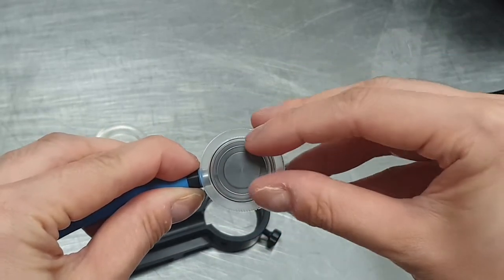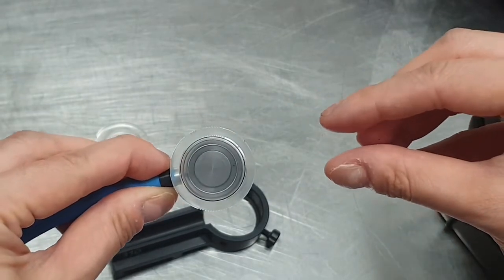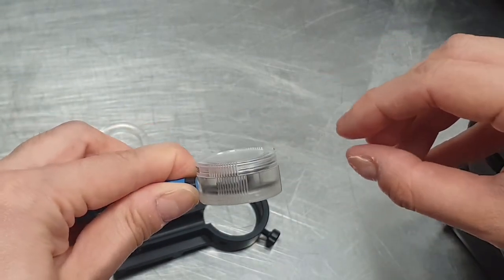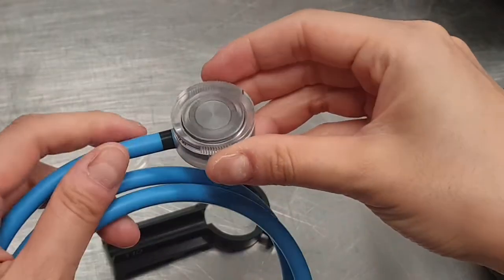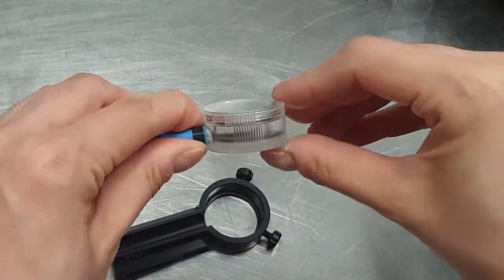The sensitive volume of the detector has 5 millimeters diameter and a plate separation of 1 millimeter. The guard ring width is 2 millimeters.